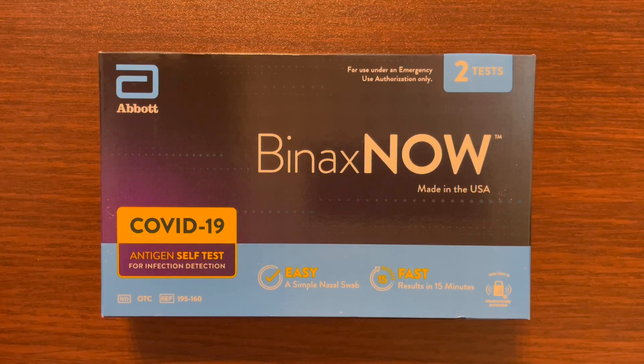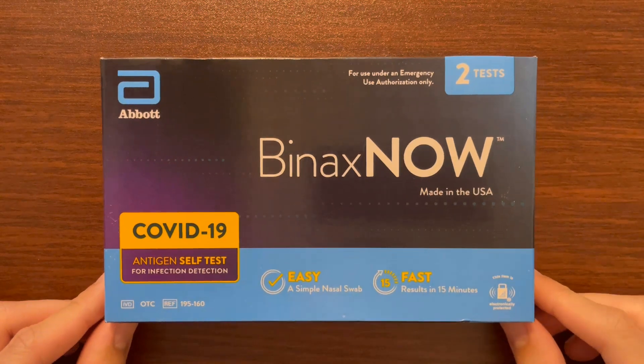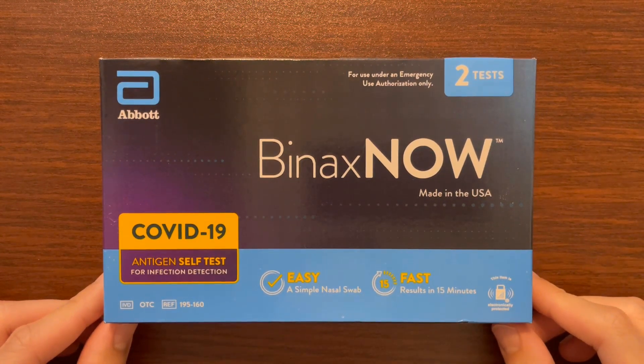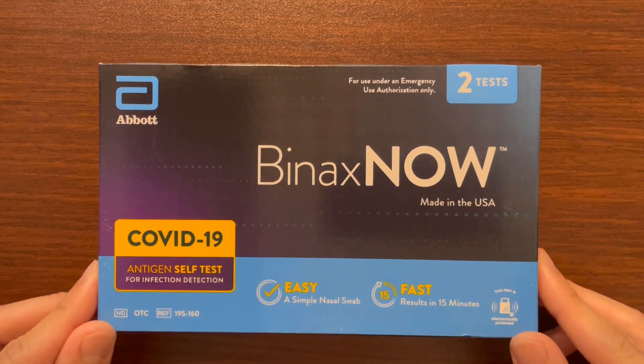Hello everyone. Today I'm going to show you how to use this Abbott Binax Now COVID-19 antigen self-test. It comes in a box like this and we have two tests in the box. First, go ahead and open up the box and we're just going to take out one test.